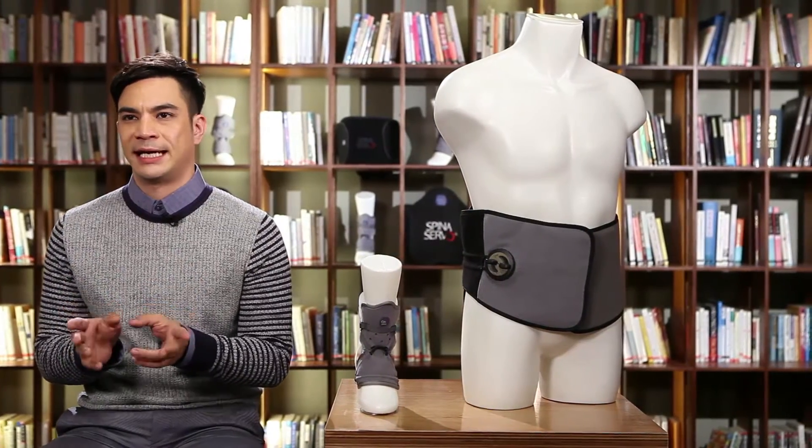Let's say that one day, through an accident or some unexpected circumstances, you injure a part of your body quite seriously. With regards to treatment, rehabilitation may be an important step. But in rehabilitation, it's equally important to find and use the right equipment and aid.